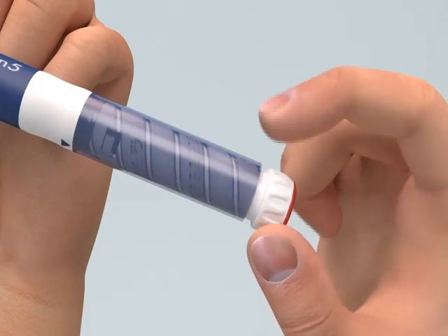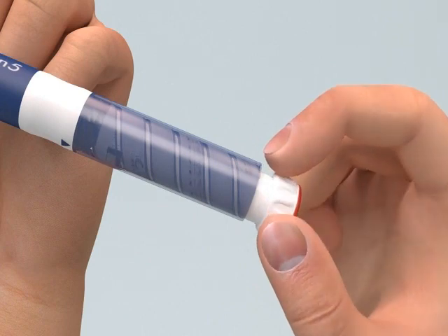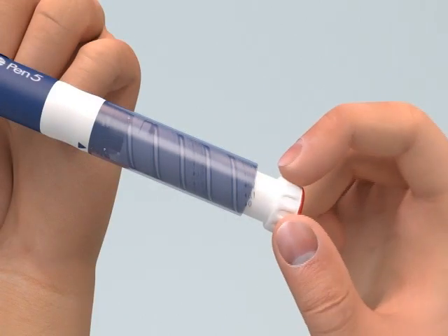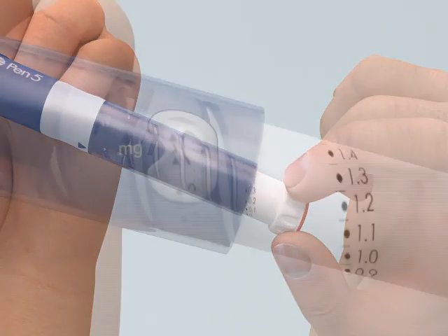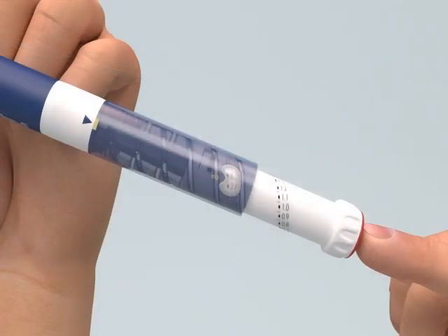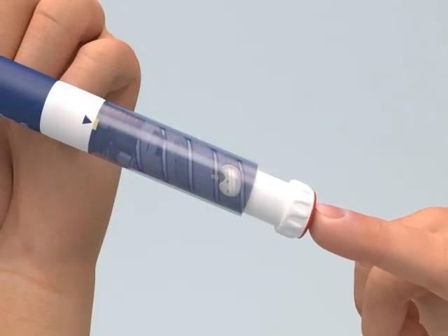If you accidentally turn the dose knob past your dose, do not dial backwards. Instead, hold the pen body and turn the dose knob until it's fully extended. Now you can press the injection button down all the way, resetting the dial to zero without releasing any medicine. The right dose can now be dialed.